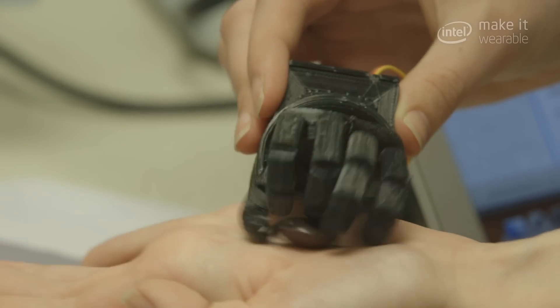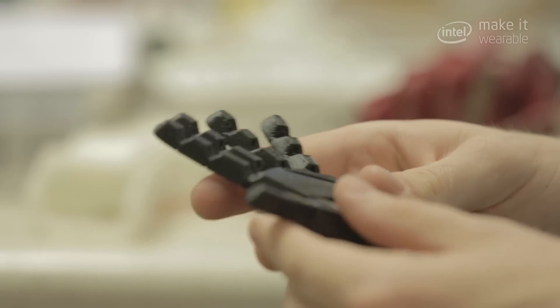Jacqueline was saying that if she had a robotic hand, she just wants to be able to tie her hair back. I mean, it's such a small thing that we all take for granted, but that makes a huge difference to an amputee.